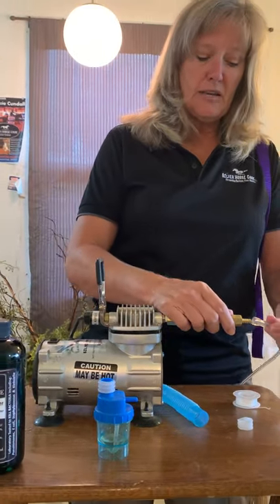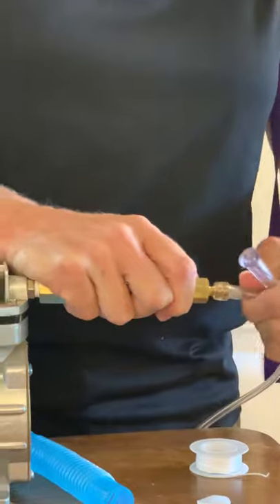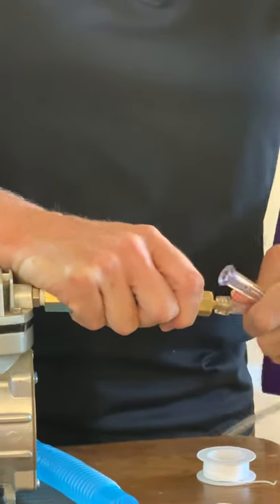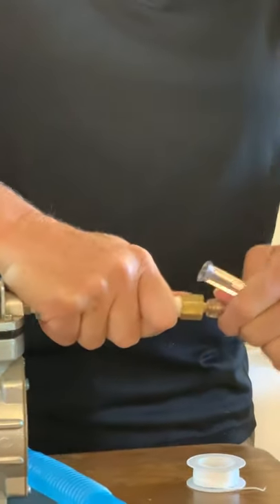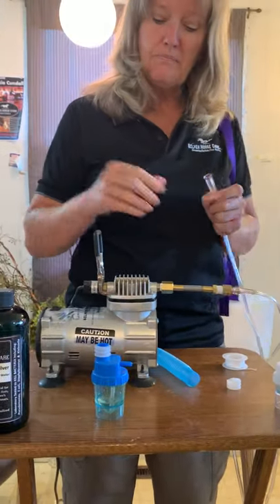These need to go to the right place each time to keep your hoses from popping off. So we're going to go ahead and put the soft end on the compressor, and you'll want to walk it up there just as good as you can. Okay, we've got that on there. We've got our silver in our medicine cup.